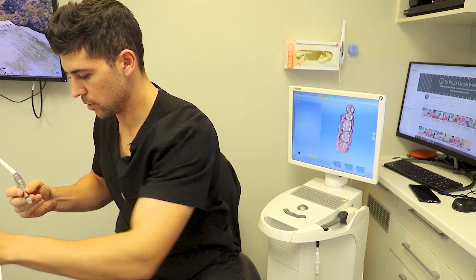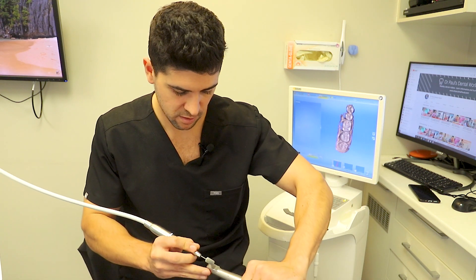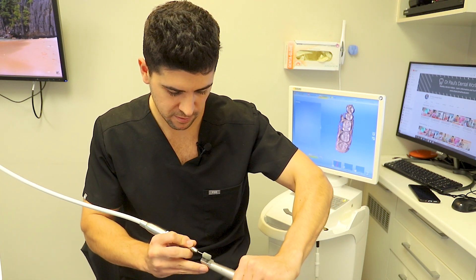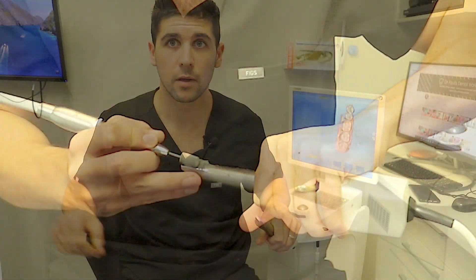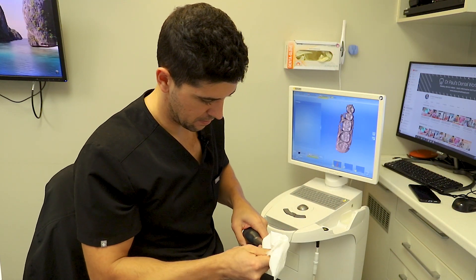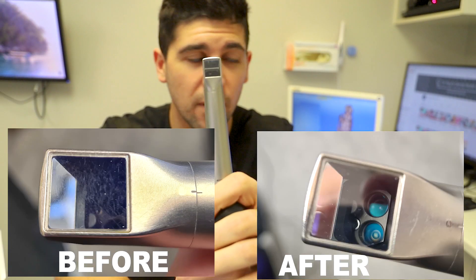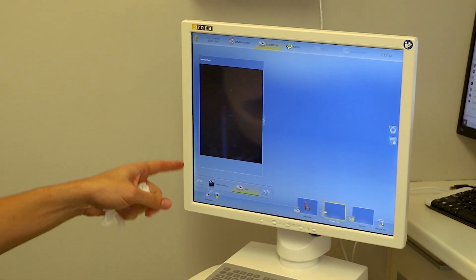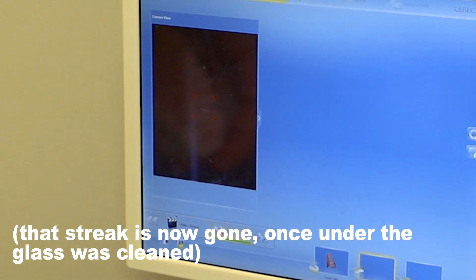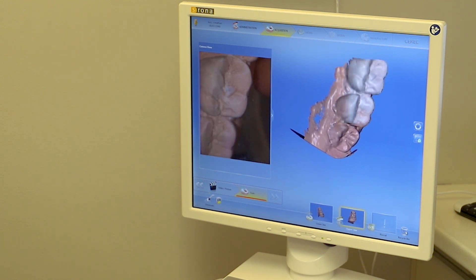So that's a minute. I'm going to put a tiny bit more of that polishing compound on and then do it in the opposite direction as the directions say — turn it 90 degrees. Okay, just finished now — I'm going to wipe it over. Oh wow. I'll take a photo in case you can't see it, but wow. Looking at this screen I can see it's already looking better, but we might need to clean up under the lens there. Yeah, that seems nicer — there's just less shrapnel on the screen.